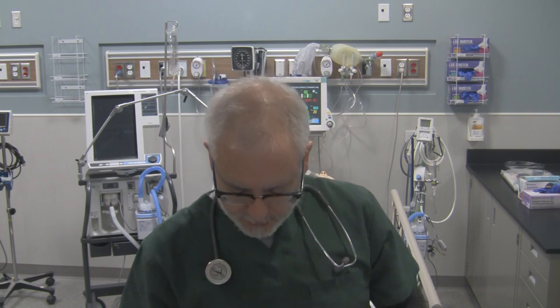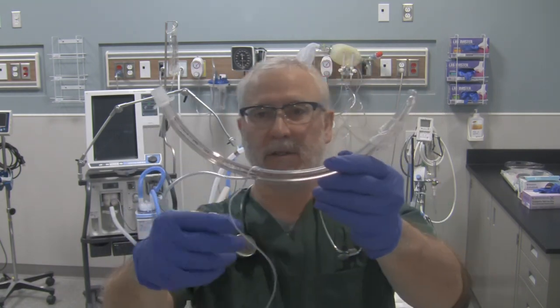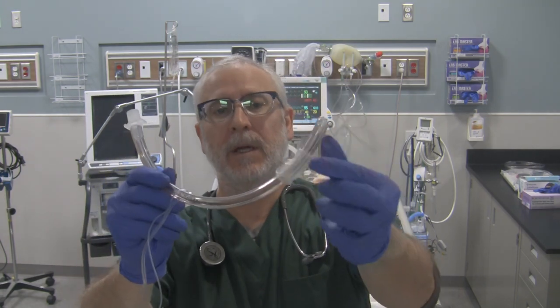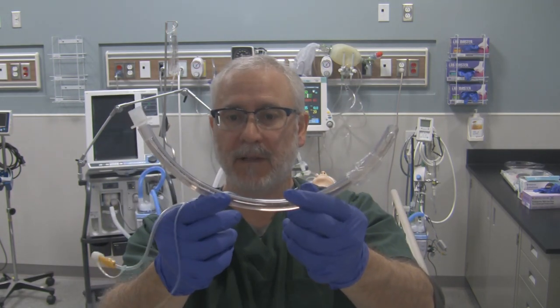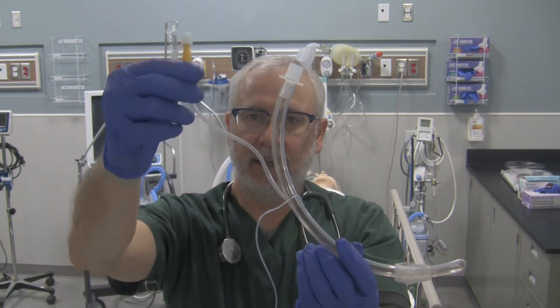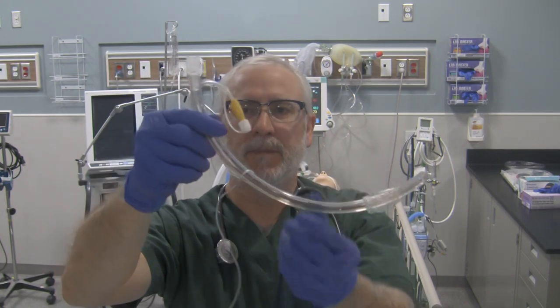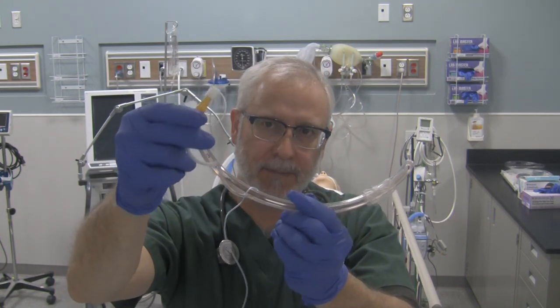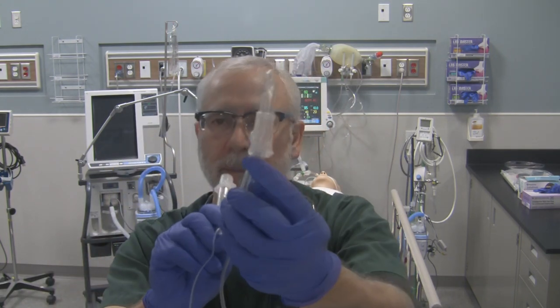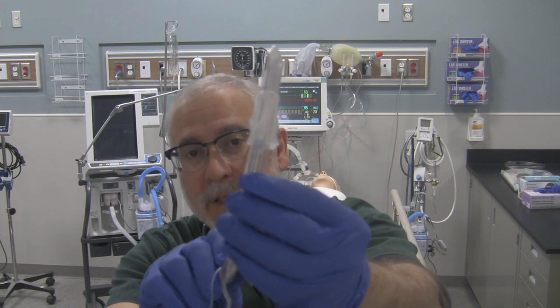A variation of your basic endotracheal tube is called an evac tube. Pretty much looks the exact same — patient adapter end, distal end, Murphy's eye, the hole at the tip, and your cuff, which is a tapered cuff. But what this evac tube has on it, besides the pilot balloon line and pilot balloon, is this extra catheter right over here that follows the posterior portion of the tube. This catheter is called an evac catheter — an evacuation catheter — and it runs the full length of the endotracheal tube all the way down to a little hole that sits proximal to the cuff on the bottom of the tube.